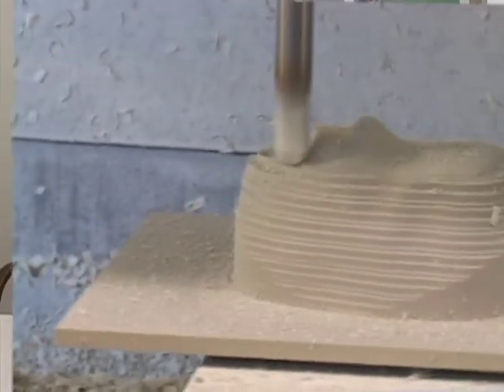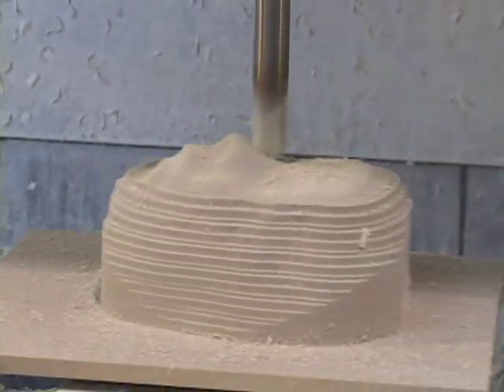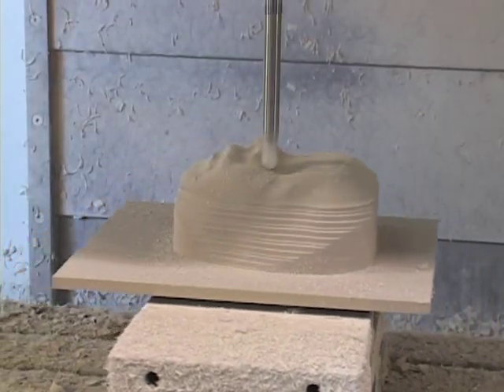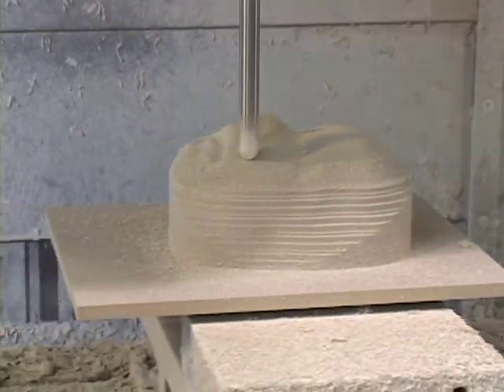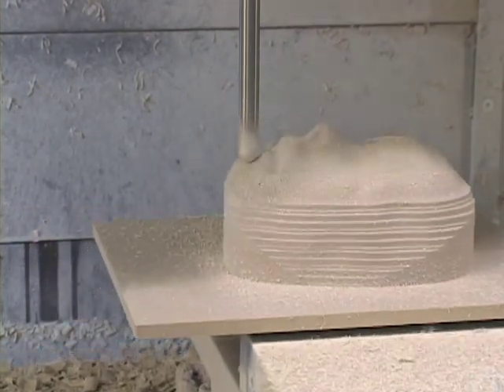We scan the patient — 10 minutes, stop. We redress the patient and leave. We set up a GoToMeeting time with a technician from SimMed, and he and I work together on modifying the scan of the patient's face to what I need it to be.